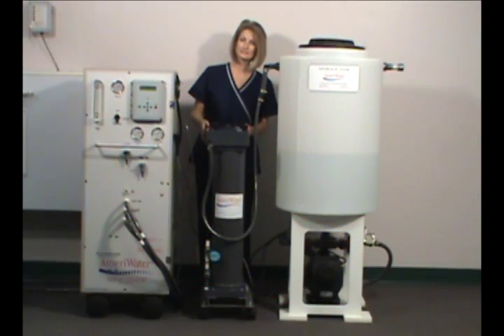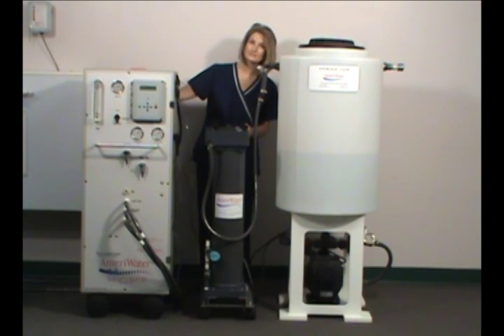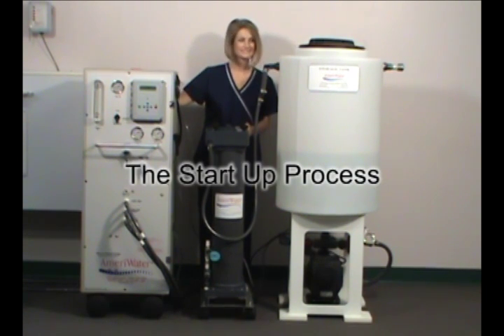Once your AmeriWater high purity water system for central sterile services is properly connected, it's time to begin the startup process.